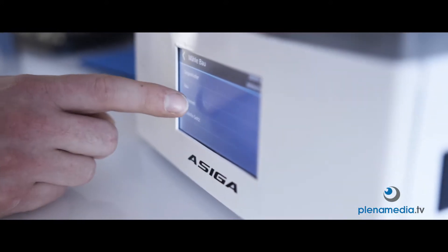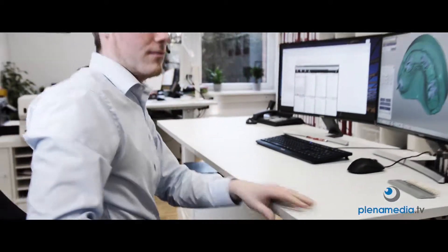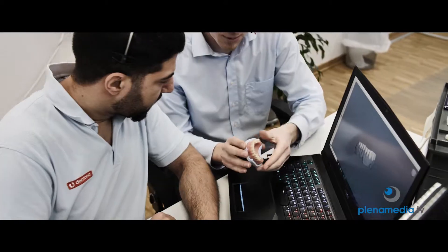Dentona digital dental technology means high-end technology and high-end technicians. They see and optimize everything in the micron range.